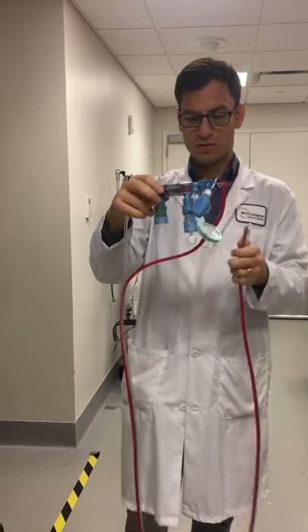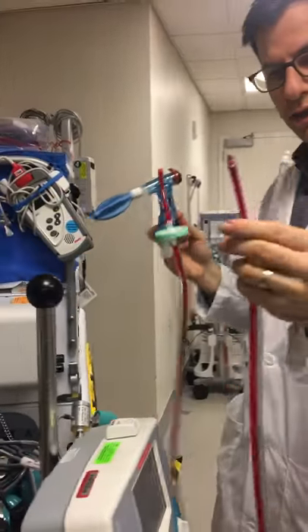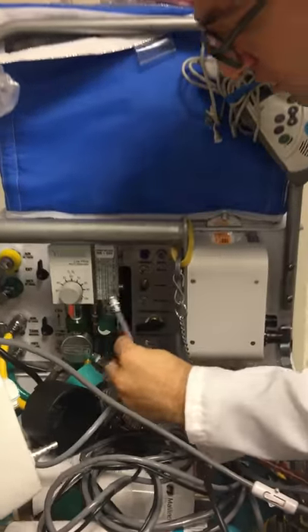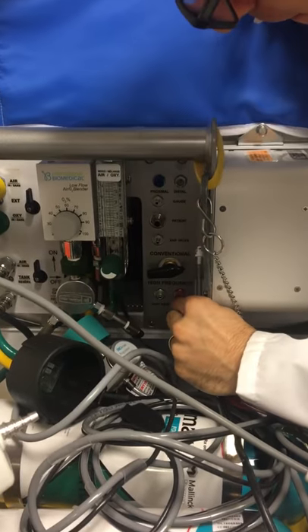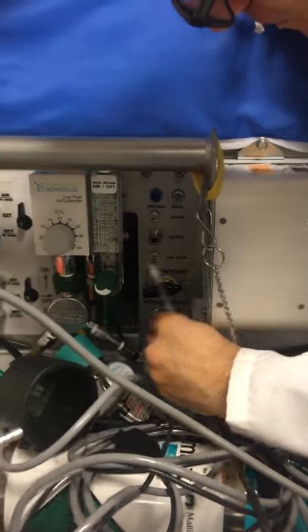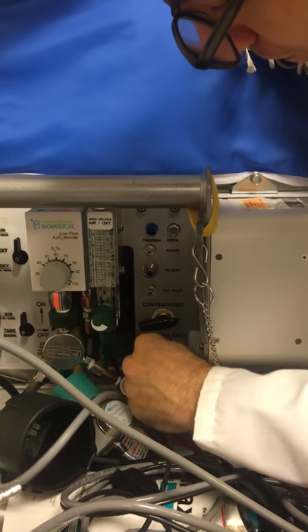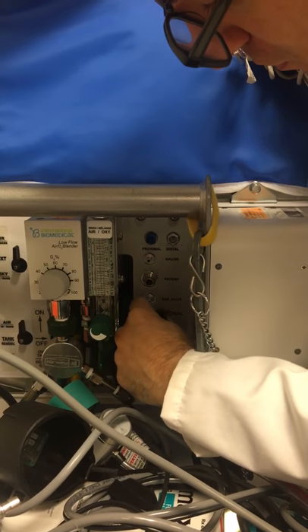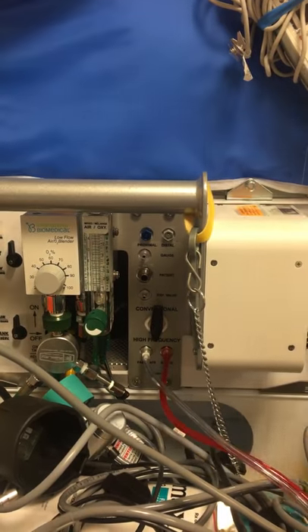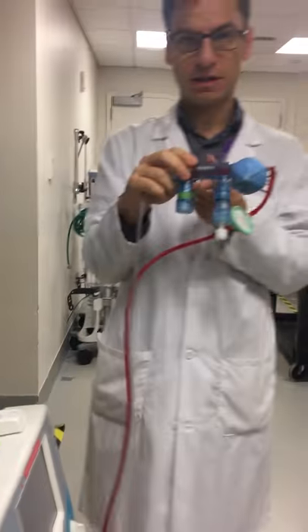We're going to hook in our red pressure line to the back of the transporter — red to red right here, high frequency — and clear to clear. Snaps in like Lego. We're going to point our knob towards high frequency. As soon as we point the gas source towards high frequency, the action starts.